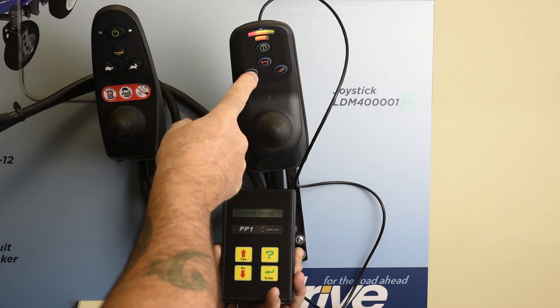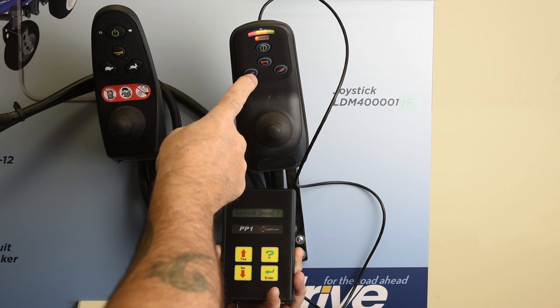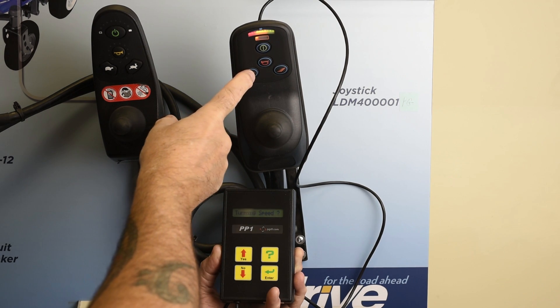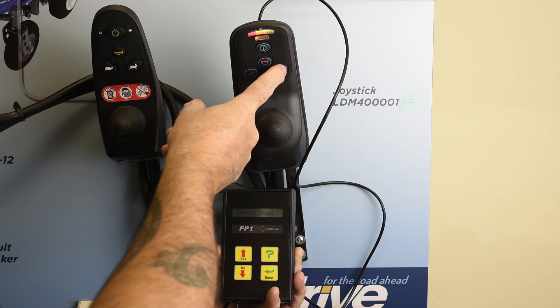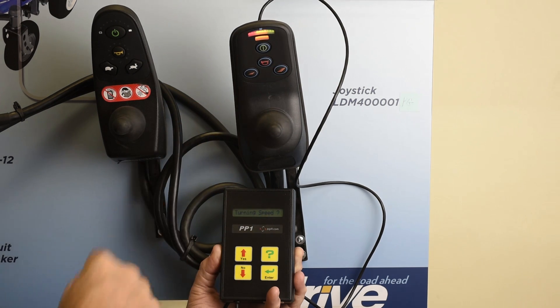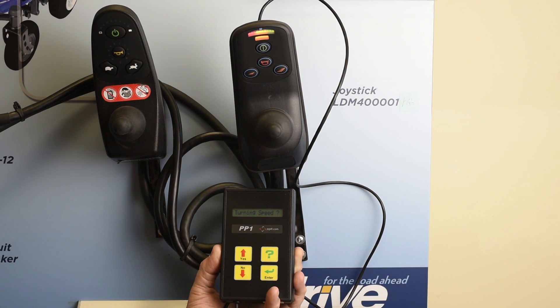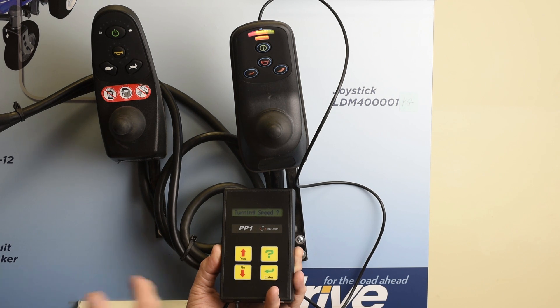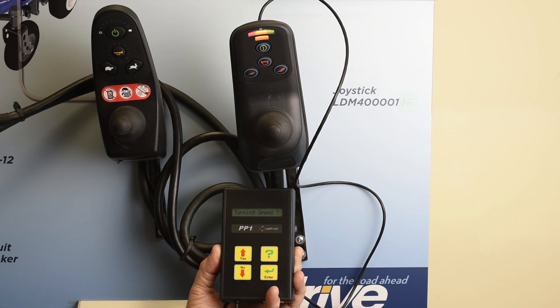You could step to a slower speed using that button, but the problem is that the client in the nursing home can always hit those buttons and speed back up, creating a dangerous situation again. So we have to do it through the programming.